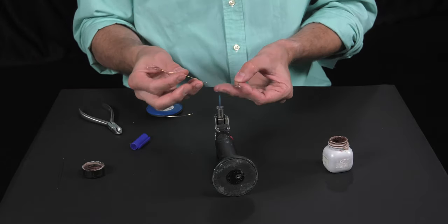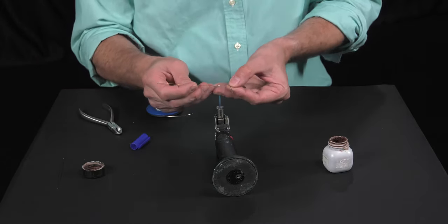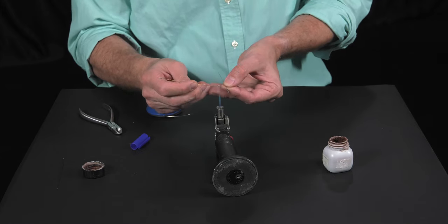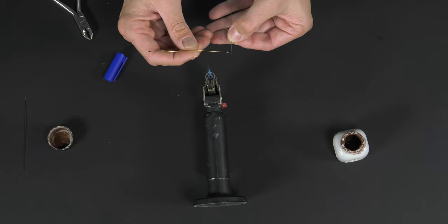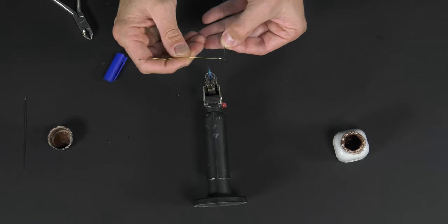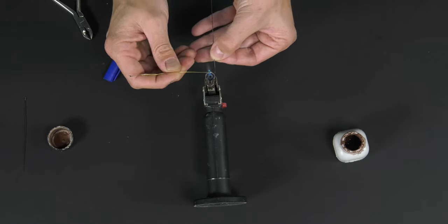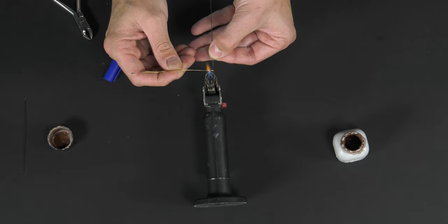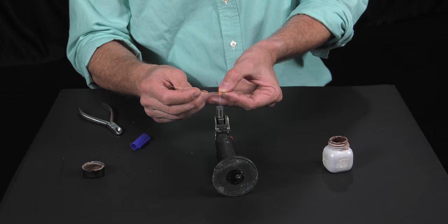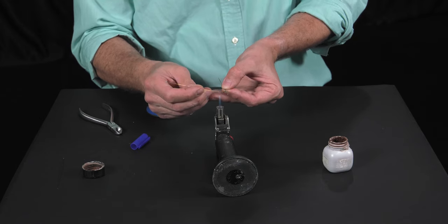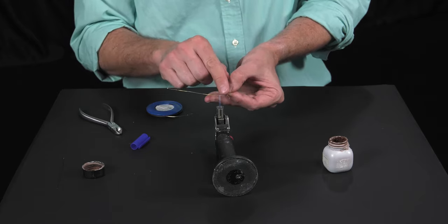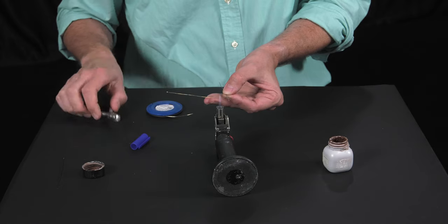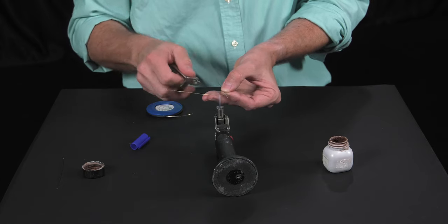Now, it's very important to stabilize both hands. Bring the end of the brass wire with the silver solder to the flame, and never heat the archwire because it would lose its mechanical properties. The heat passing through the brass wire melts the solder and allows it to bond to the wire.